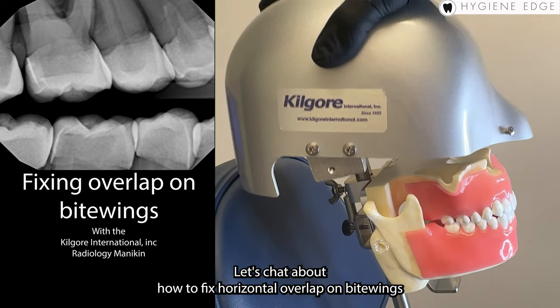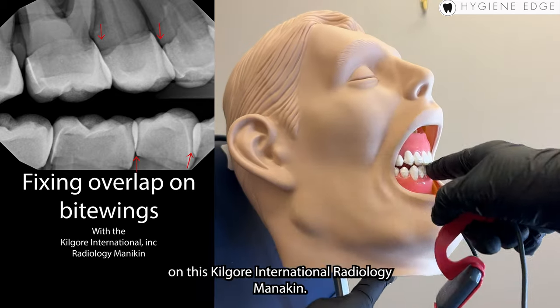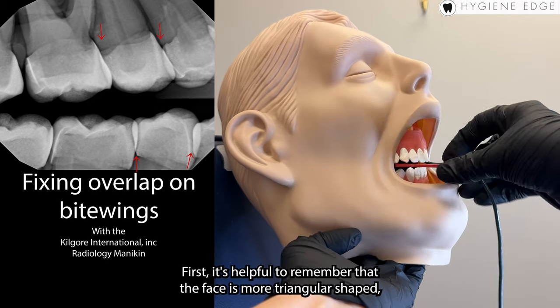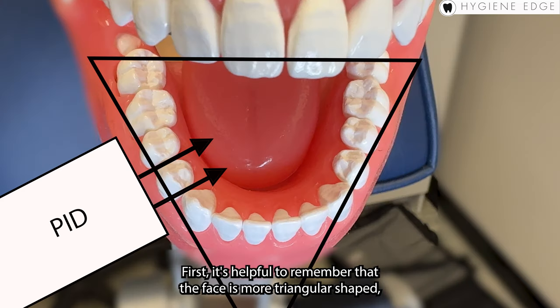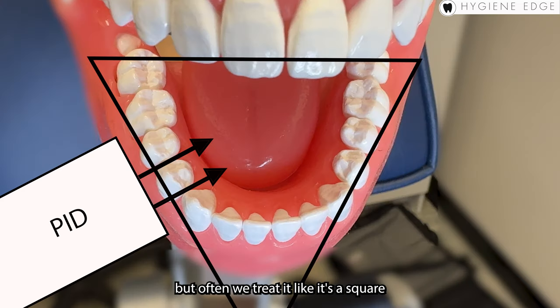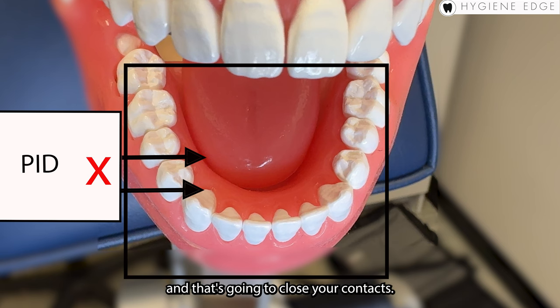Let's chat about how to fix horizontal overlap on bitewings on this Kilgore International Radiology model. First, it's helpful to remember that the face is more triangular shaped, but often we treat it like it's a square, and that's going to close your contacts.